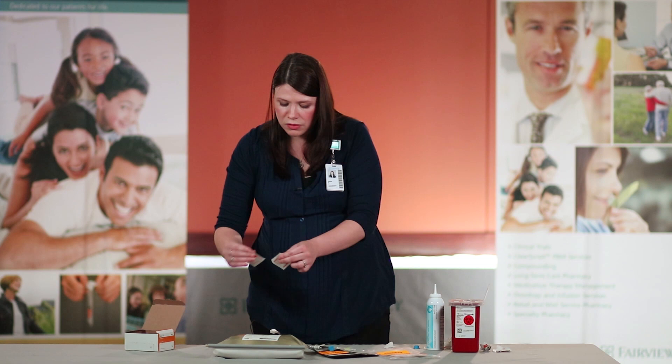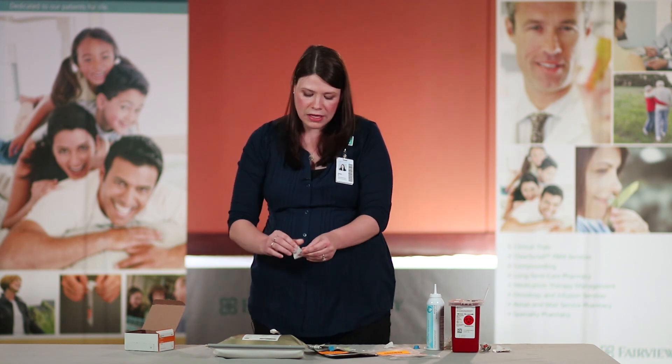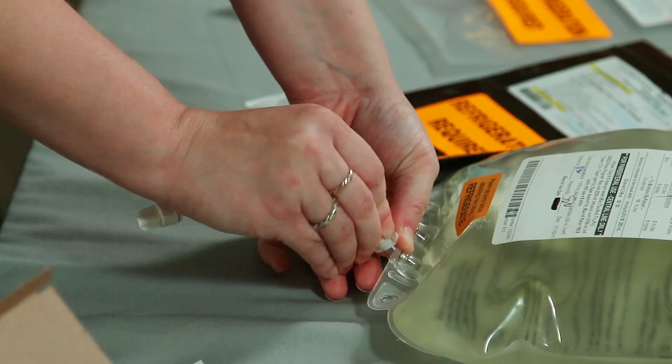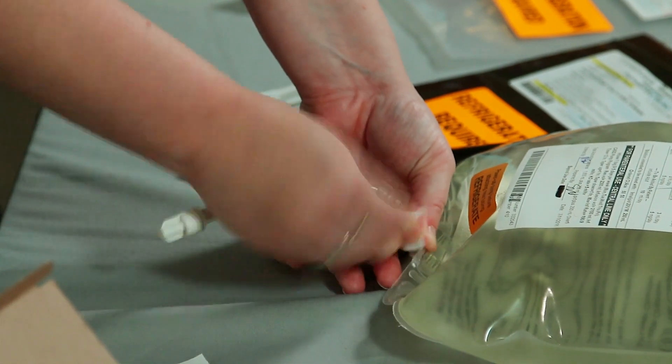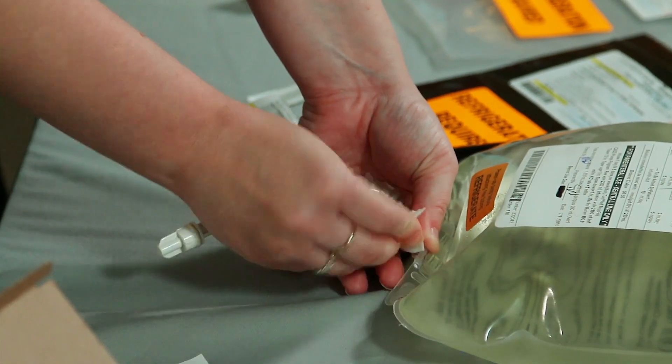Take a fresh alcohol prep pad and once again scrub the port of the TPN bag for 15 seconds using good friction and scrubbing motion.